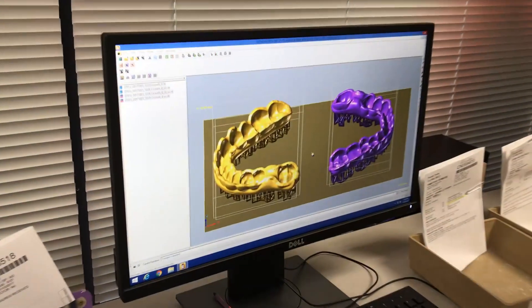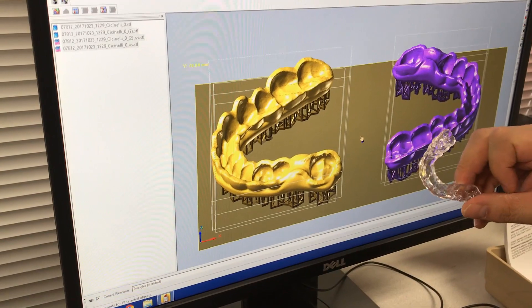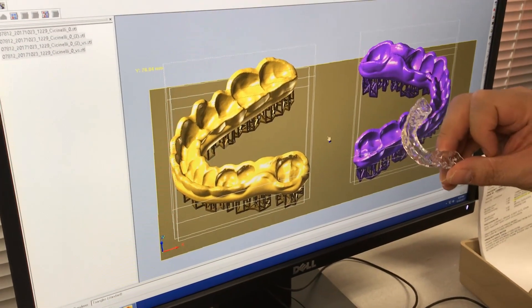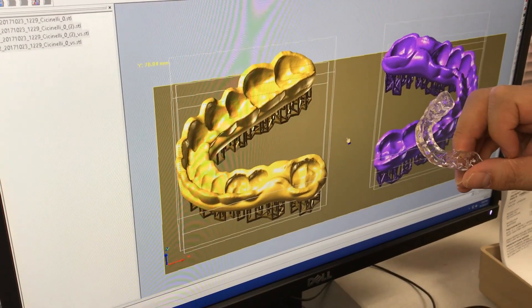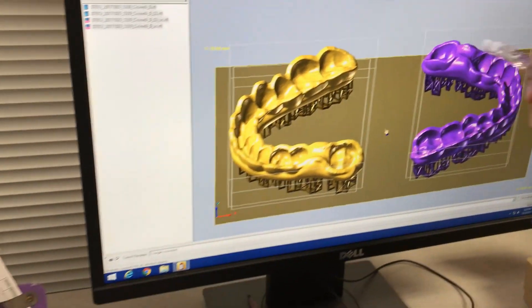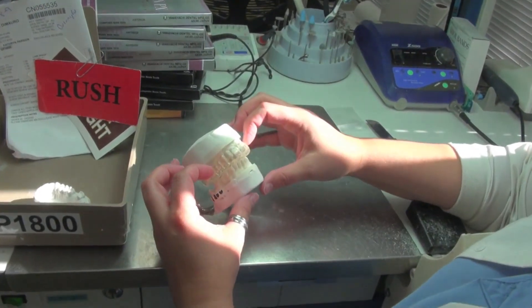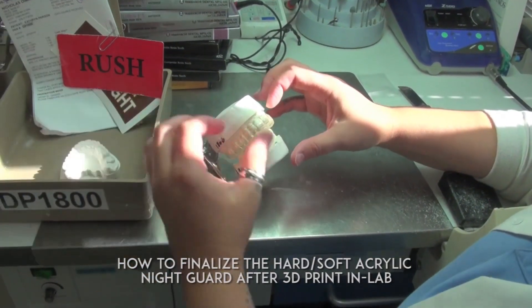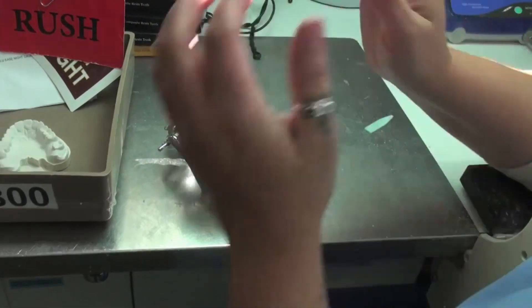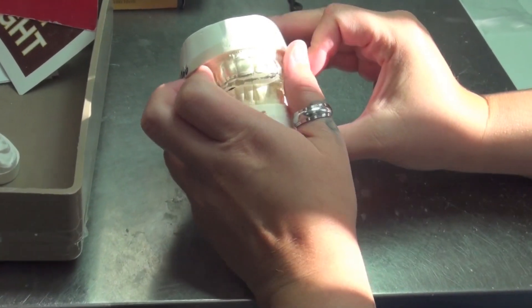This one, just like that, is the hard acrylic we are printing. So we make the room underneath — we'll do the soft liner, put it in there, and then finish them up. After we print the model I need it for the reline. Since this model is not articulated, I have to go and make a putty and just roll it to a thin ribbon so I have my occlusion where I want it.